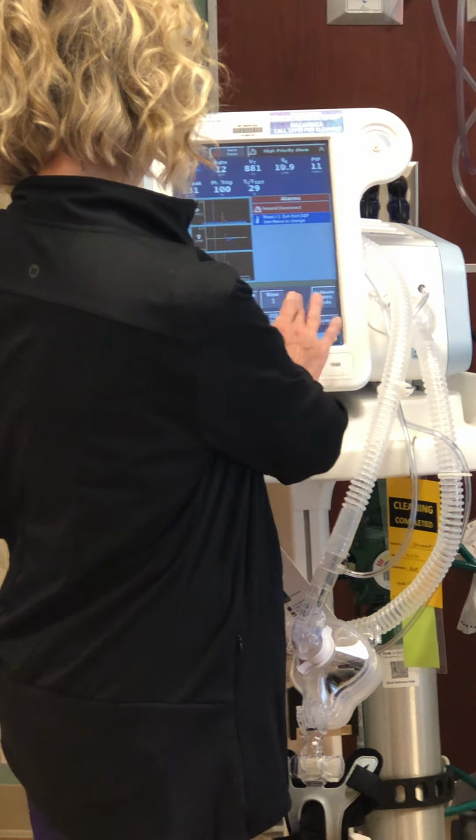So if you've got a patient that you've put in AVAPS mode, and I always forget this, it's average volume assured pressure support. That's what the AVAPS stands for. Basically what we do here is we set everything that we would for a vented patient, but it's without the endotracheal tube, so it's non-invasive ventilation really.